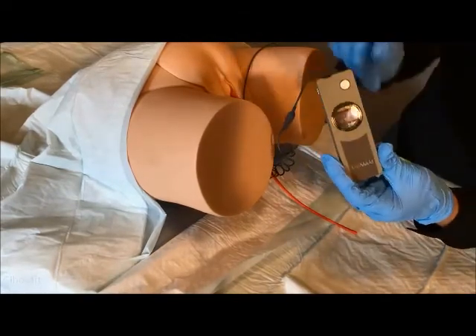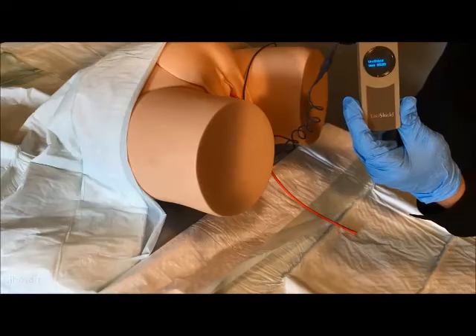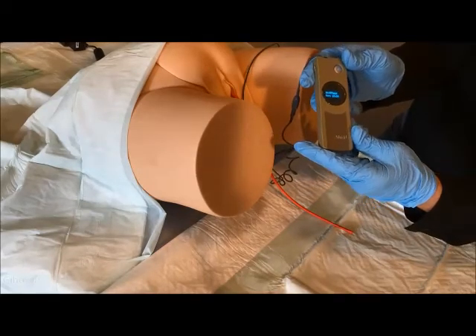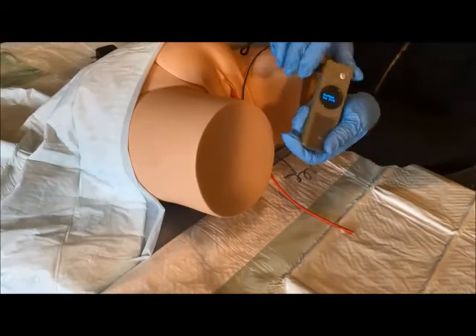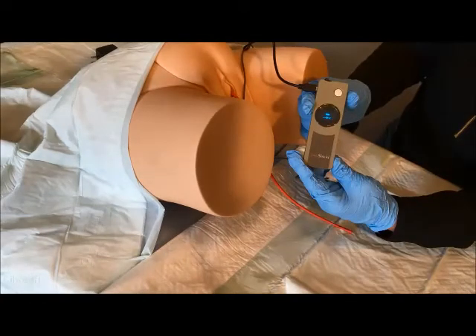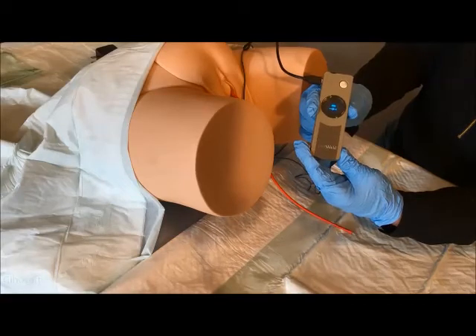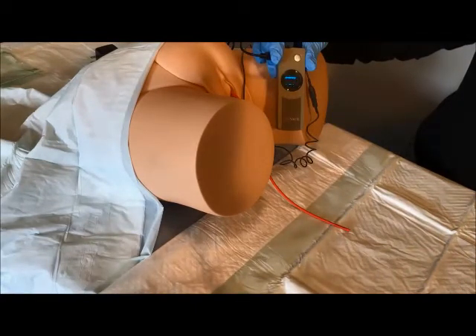To switch the Uroshield on or off, press the driver's on-off button for two to three seconds. The driver will show firmware versions and perform initiation that may take about 30 seconds. While this occurs, connect the driver to the mains using the supply main charger — connect the charger to the driver charging port and plug it into the main socket. The driver's display shows the battery and actuator status, and after three minutes the display dims and shows a screensaver scrolling on the display. When the screensaver is displayed, you can return to the battery and actuator status by pressing the on-off button briefly.